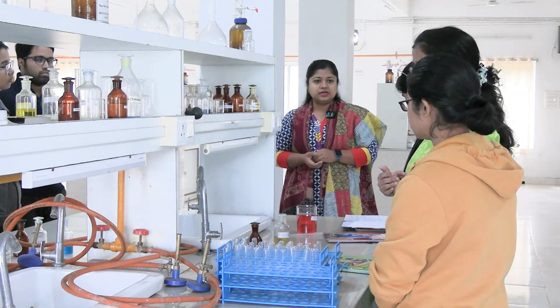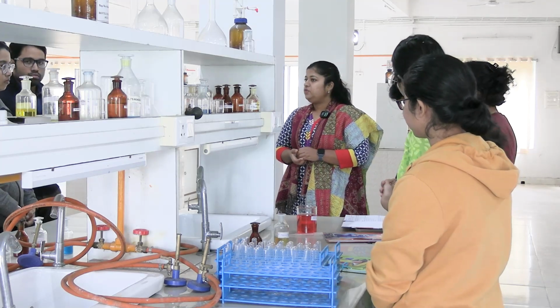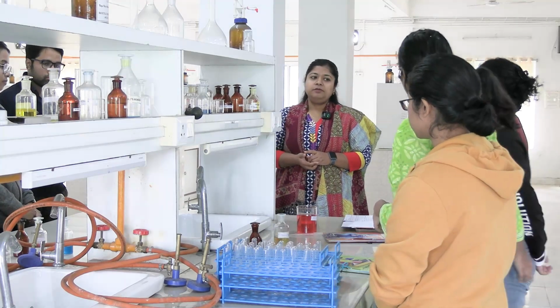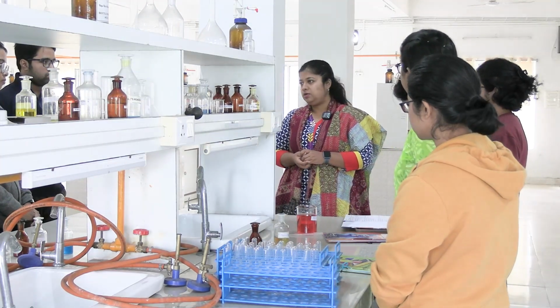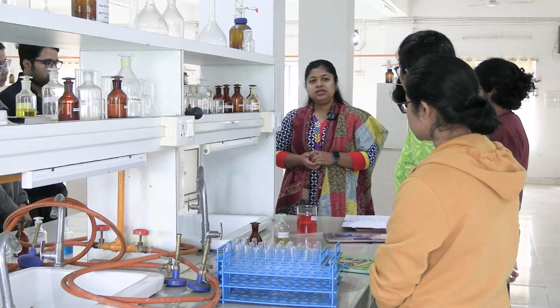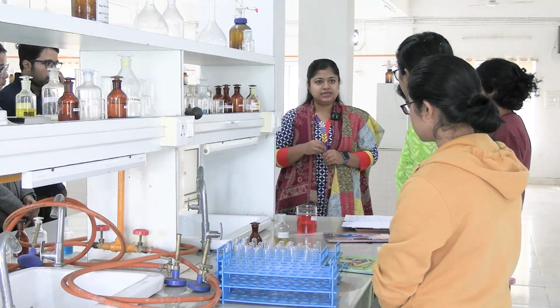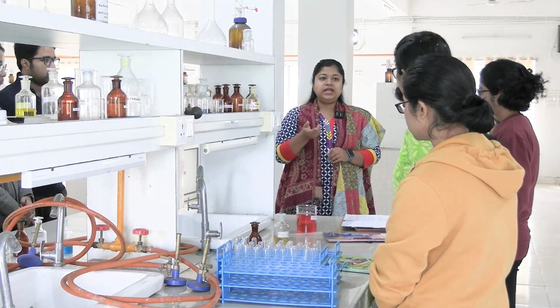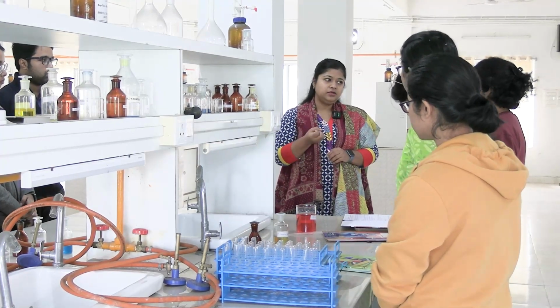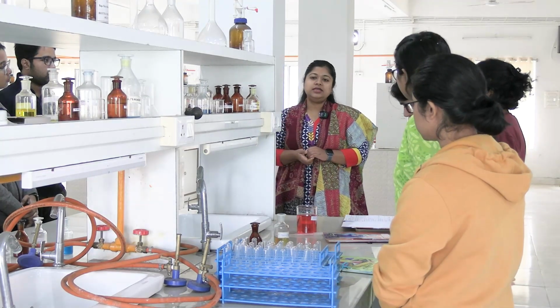Other than protein, any other substance that also gives white coagulum? Phosphates and carbonates, okay, compounds with phosphates and carbonates. But adding acetic acid to that coagulum will dissolve phosphates and carbonates, not the proteins. So after heating, when we add the glacial acetic acid, that confirms the presence of protein. Protein coagulum will remain solidified, okay. So this is the heat coagulation test, the heat acetic acid test.